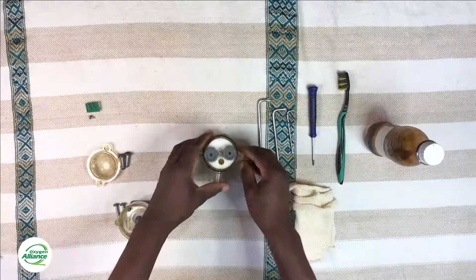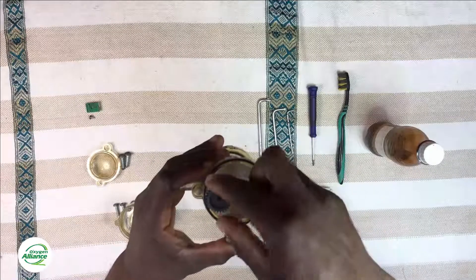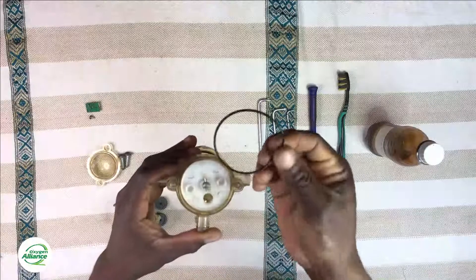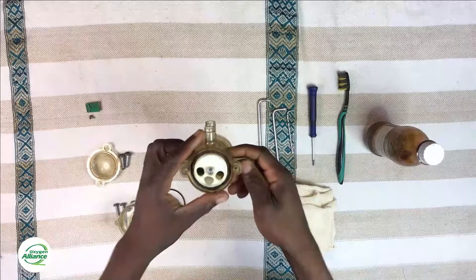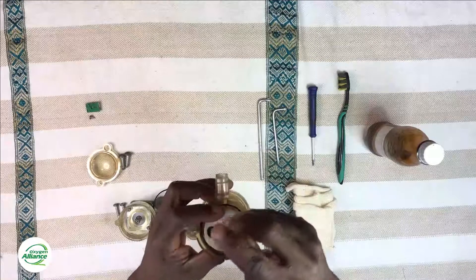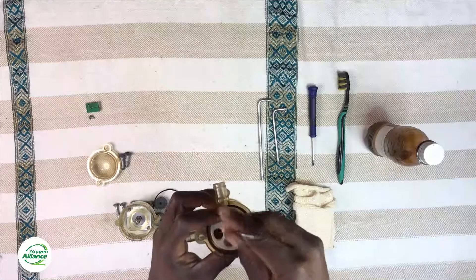The next thing is to remove the gears and the o-ring — you can just pull them out, they are not screwed down in any way. Once you do that, flip over the rotary valve and remove the small screw on the bottom of the valve that holds the three-hole disc together. You need a T10 in order to remove this one.